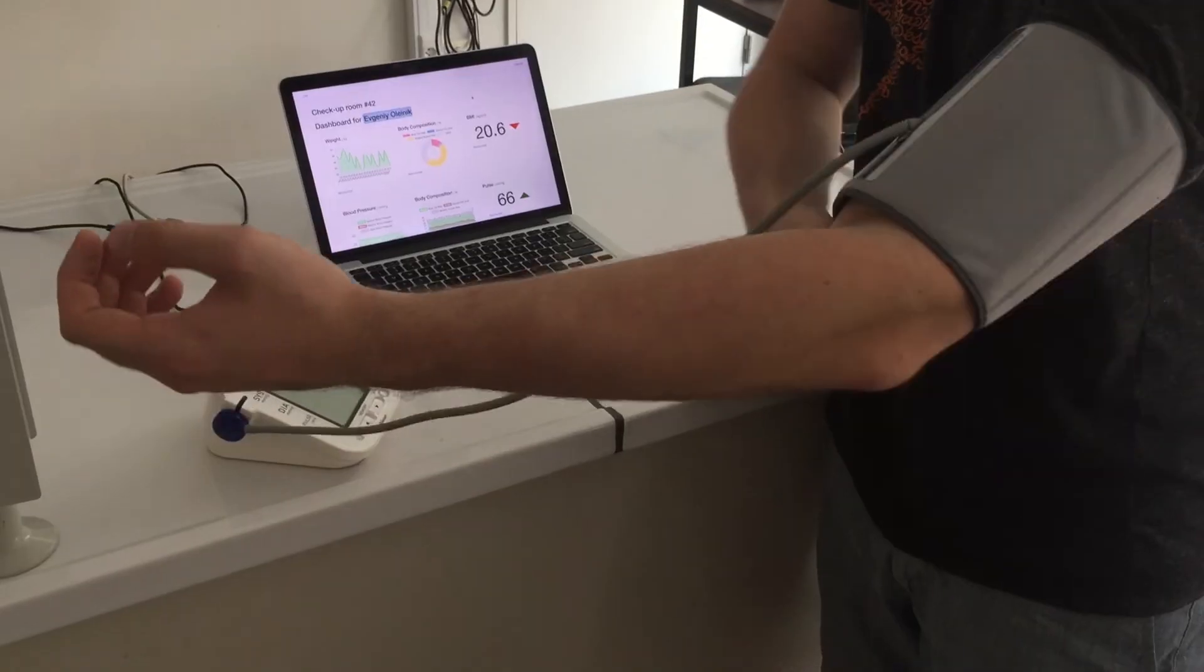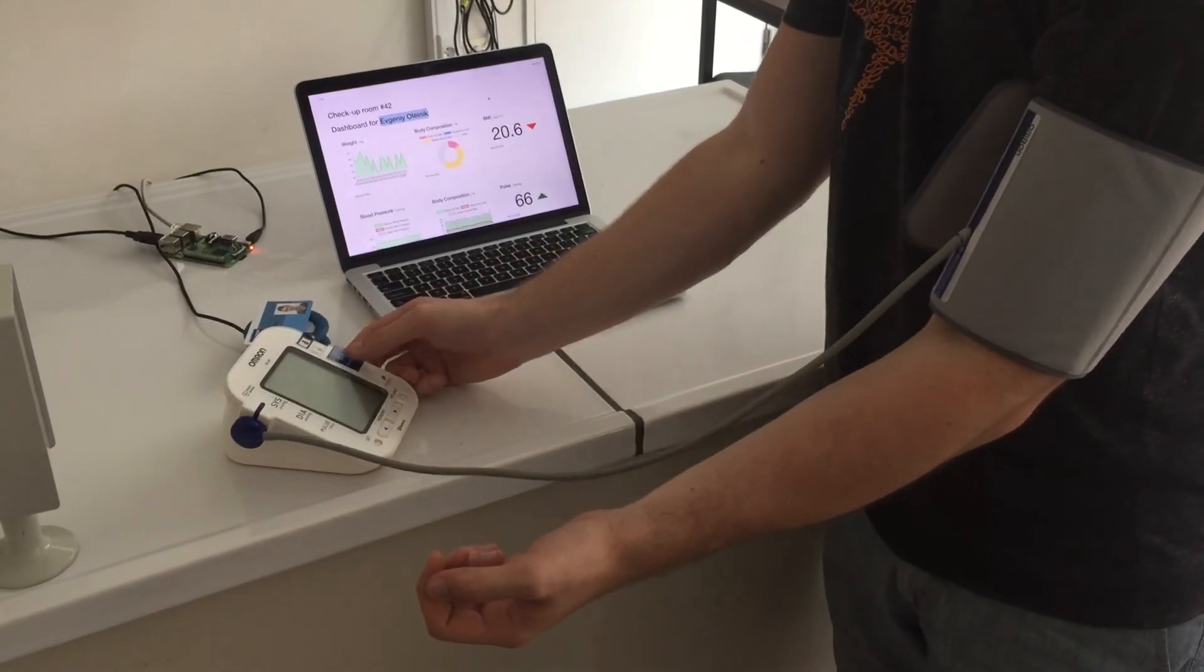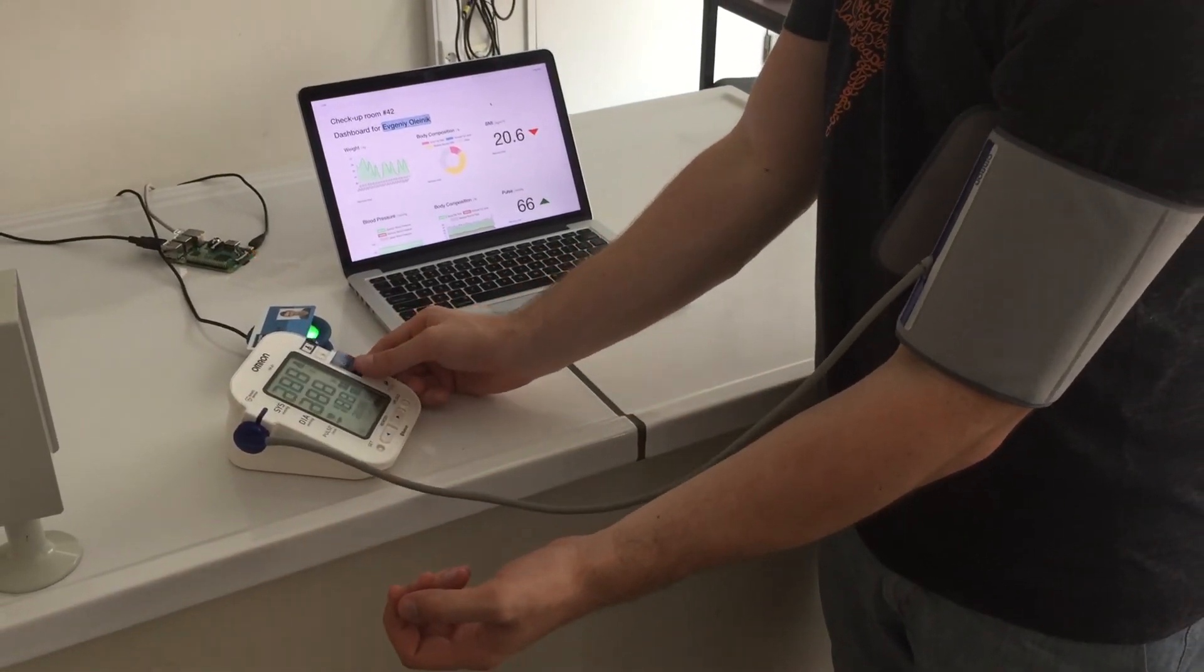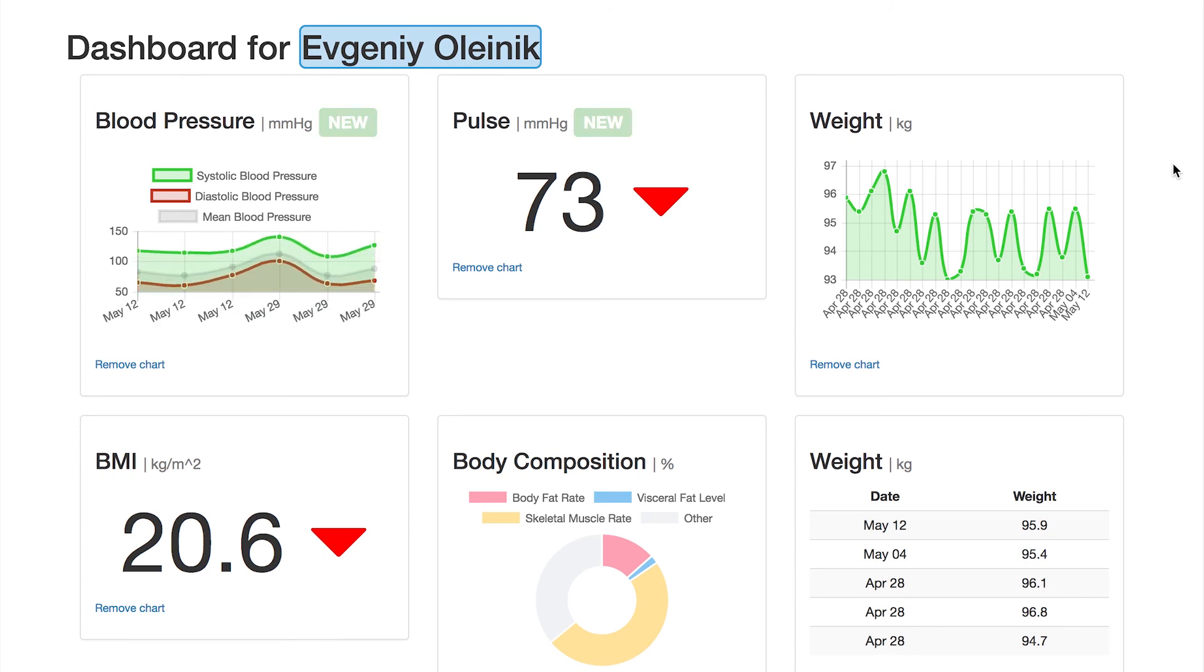Use a wireless sensor to take a measurement and within seconds your dashboard will be updated.